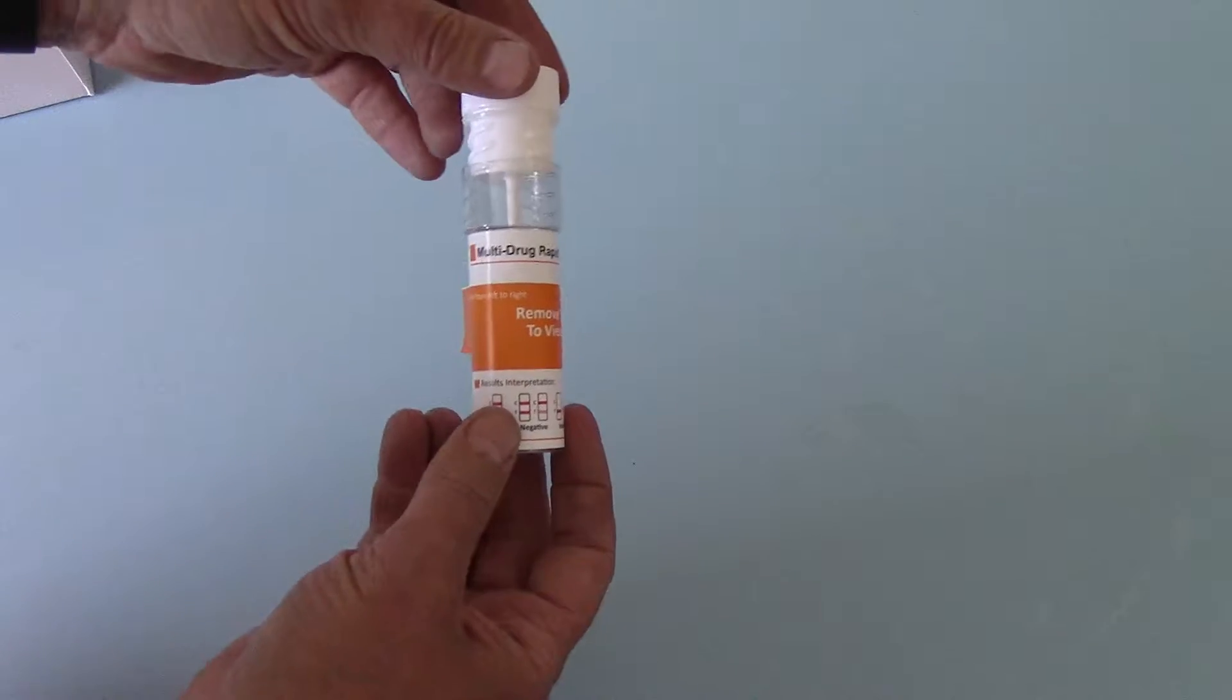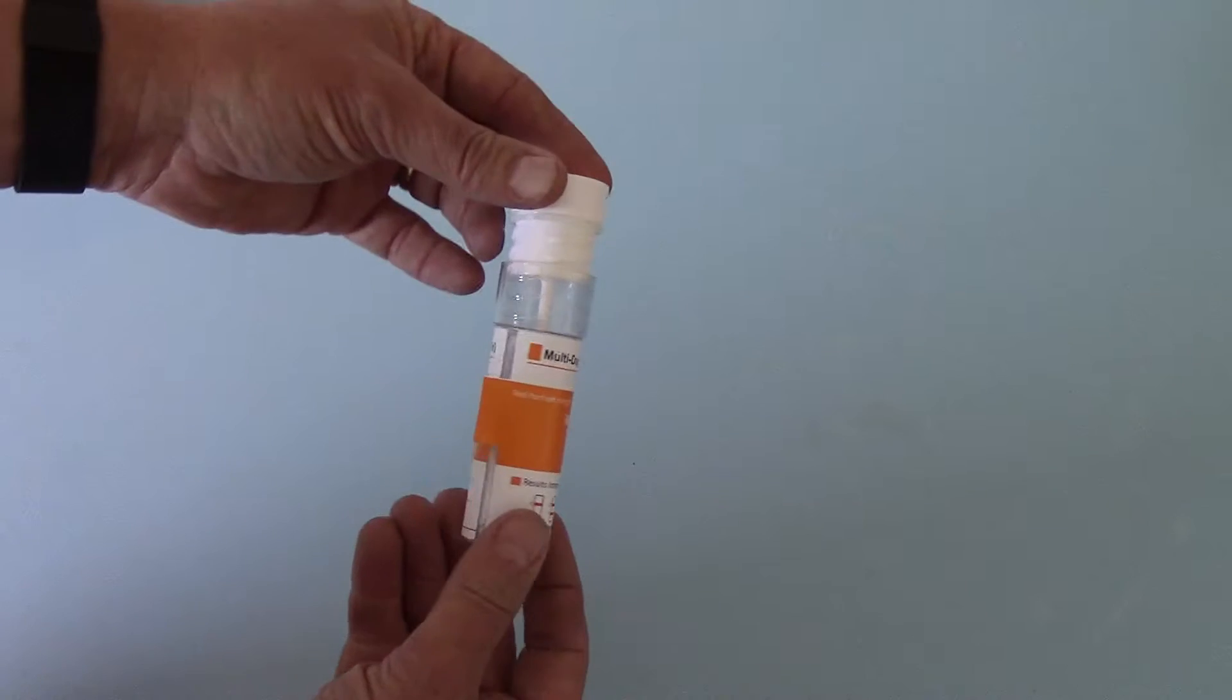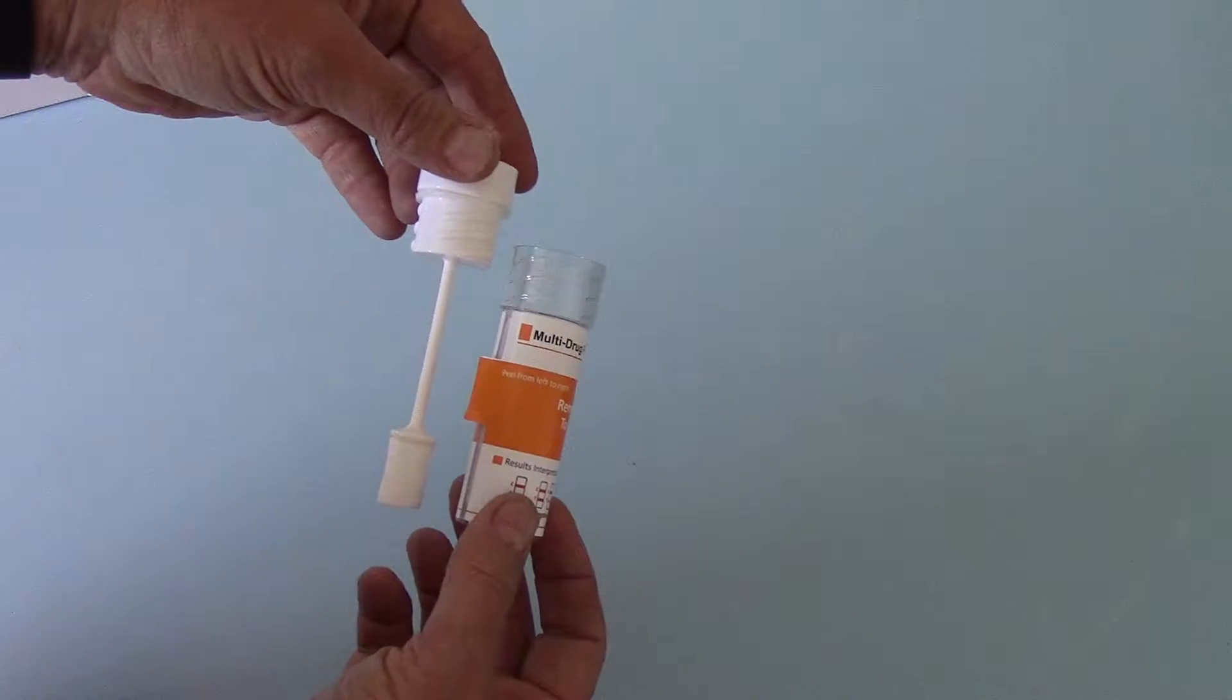The length of the barrel, this is the other thing we get, you cannot lock these together. It is too long.